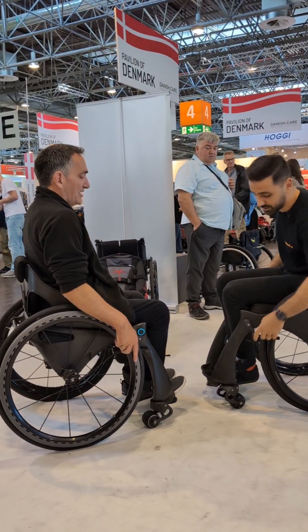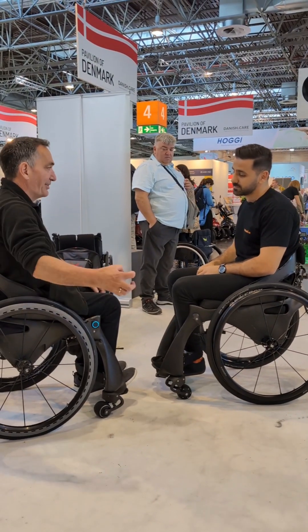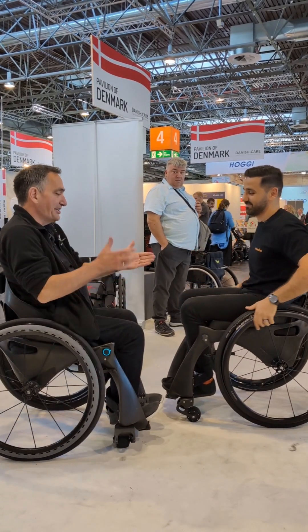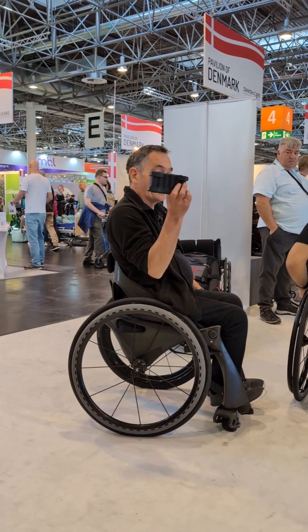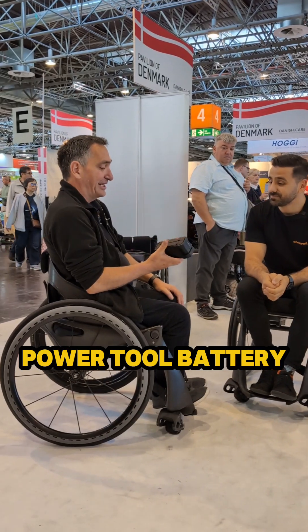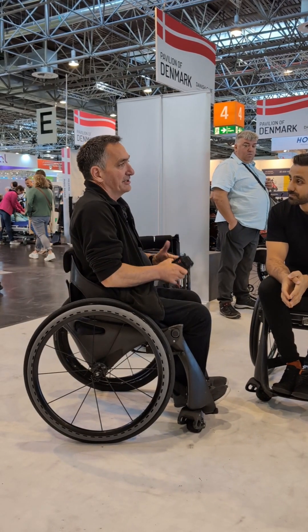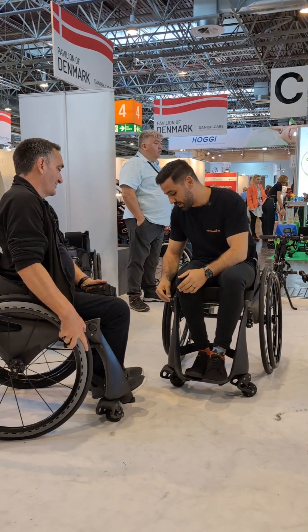It's pretty service-free. Any electronic parts that fail, you literally unplug them and plug in a new one. And the battery is interchangeable — you just pop the battery out and plug in another one if you've run out of power. If you need a new battery, these are readily available online or at a hardware store. And if you go on holiday and forget your charger, you can just use it as a manual chair and freewheel it — and away you go.